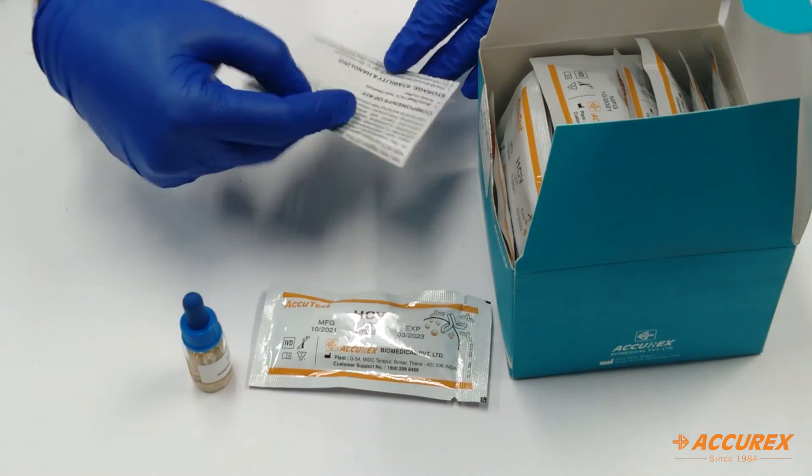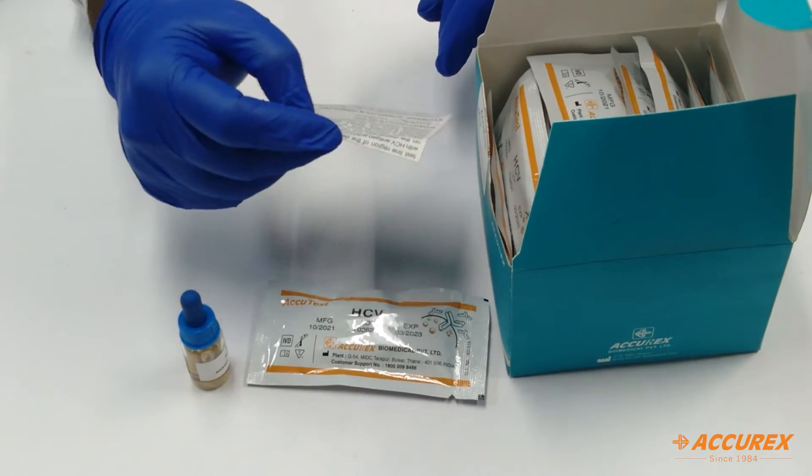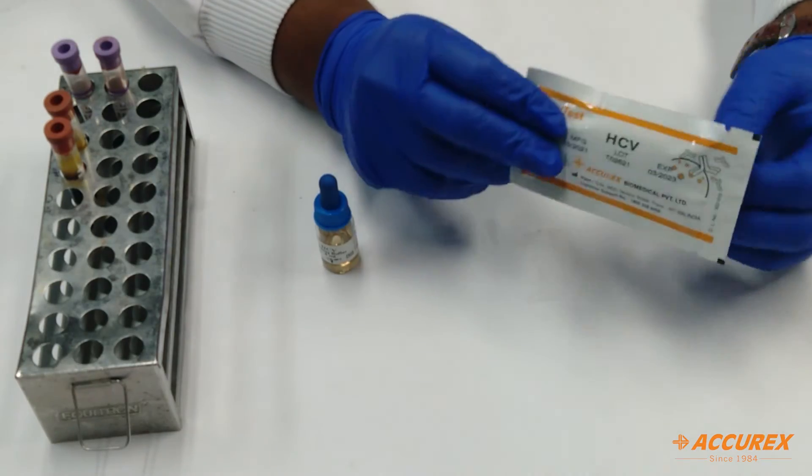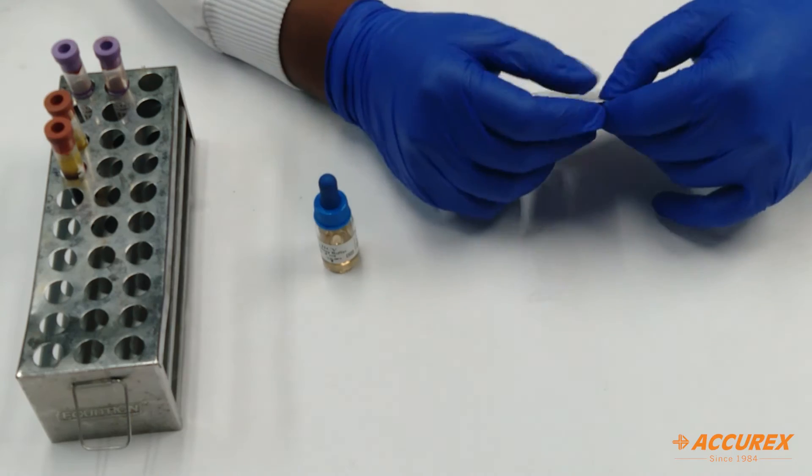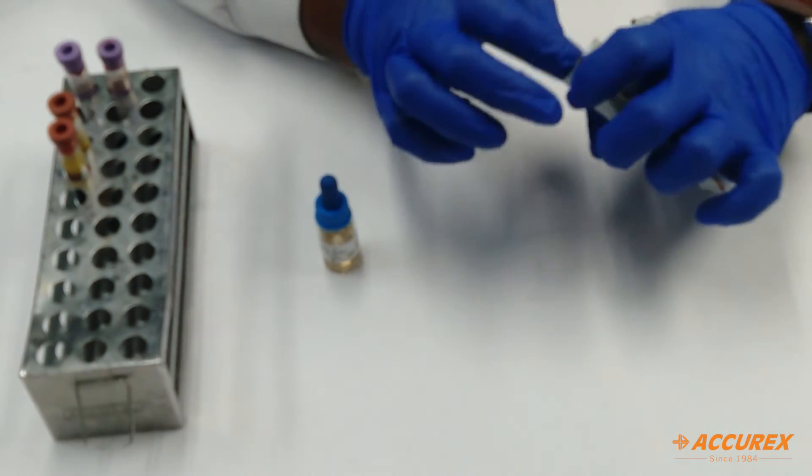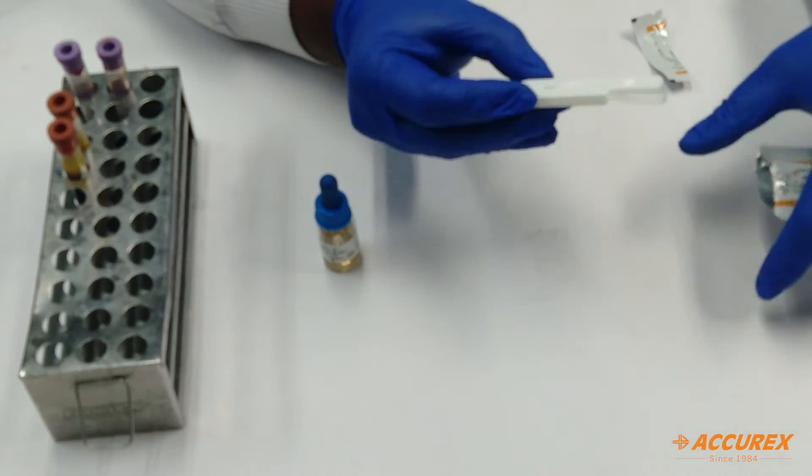For the testing, I have taken one card from the box. Inside the pouch you will find the card as well as one dropper for the sample.